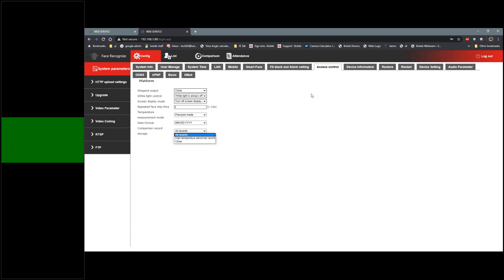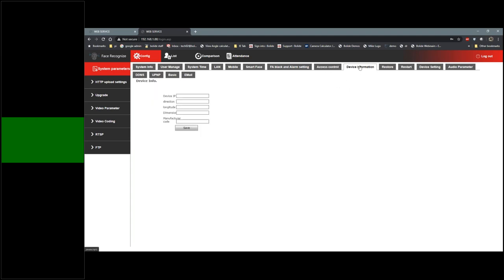How does it alert the person when being scanned if they're over the body temperature threshold? That's one of the things we're going to show in this webinar — we'll cover email notification and how to set up the alarm output. Device information is currently blank but is for a future software update allowing you to manage multiple devices.